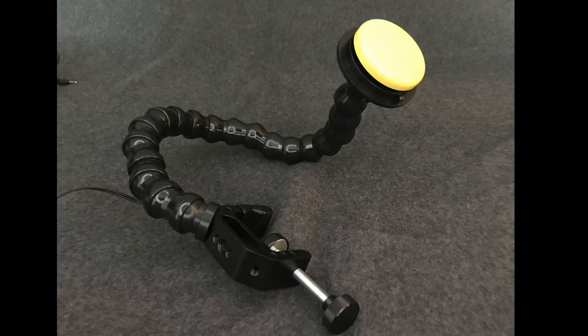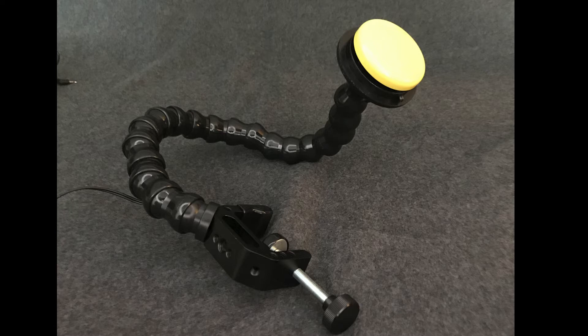The Gumball Switch on EZFlex Mount is a switch attached to a mounting arm. It weighs one pound and is 20 inches long.